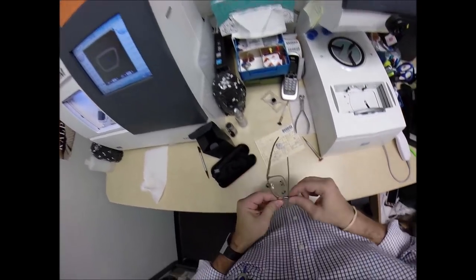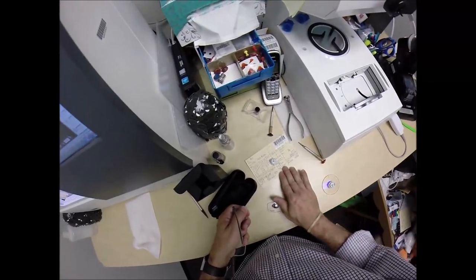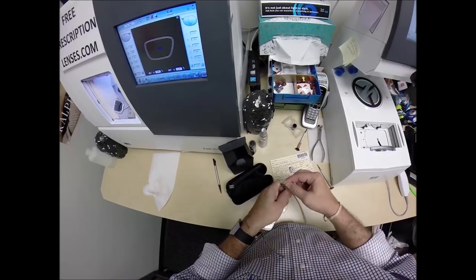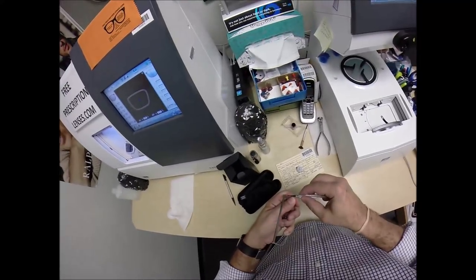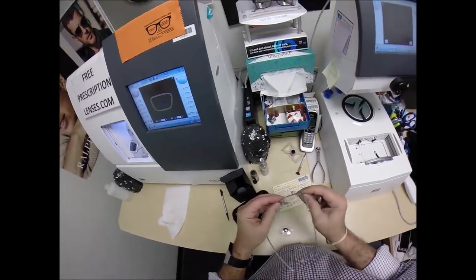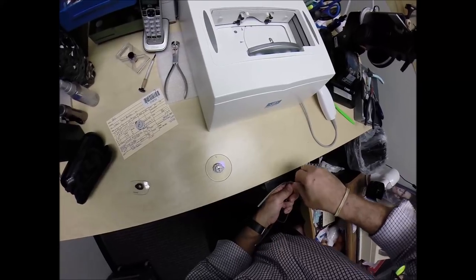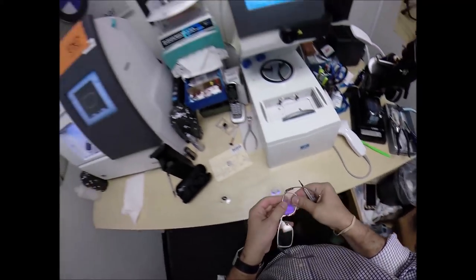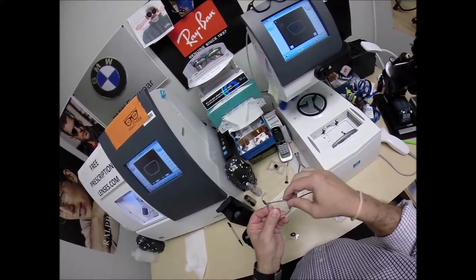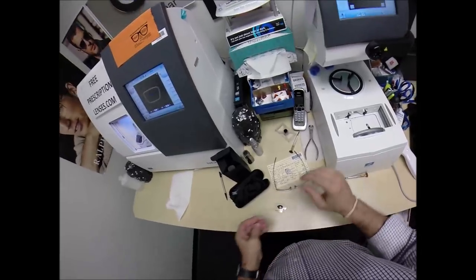Pop in there just right. Now, where'd that screw go? Make sure everything is in place before I tighten it down. We're good to go and that is on size. Got the right base curve on this lens — that was critical in ordering. We're going to do the same thing now and flip over to L.